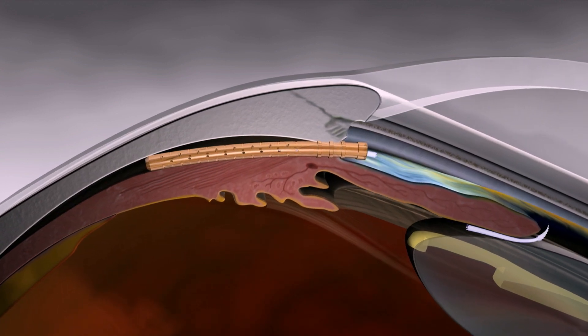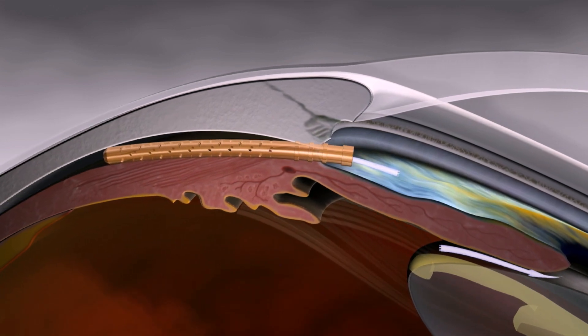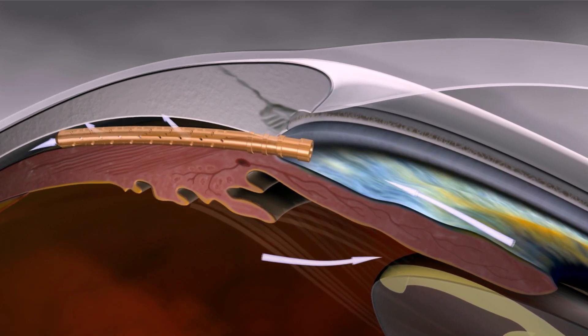Here we see the implanted Cypass Microstent, demonstrating improved aqueous outflow from the anterior chamber.